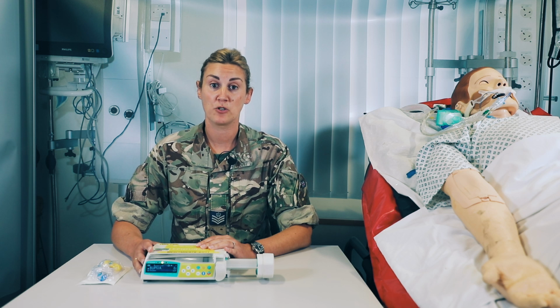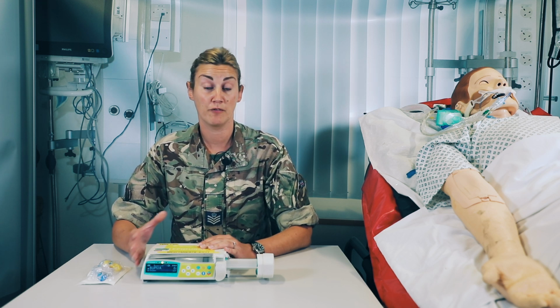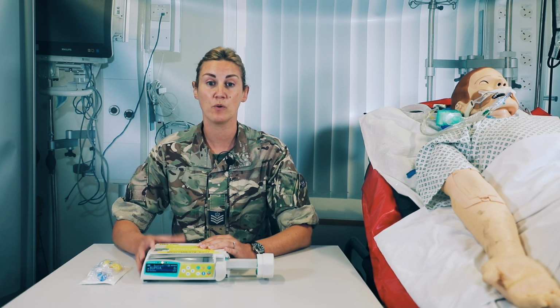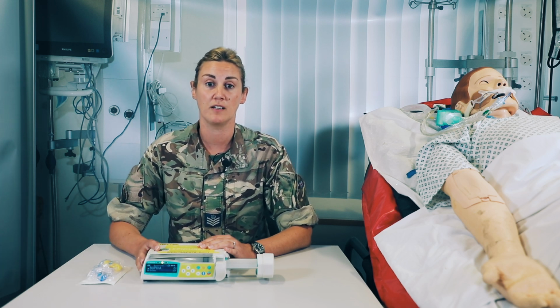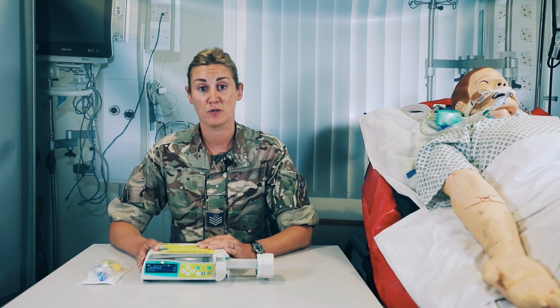The alarms on the epidural are exactly the same as the perfuser, so I'd recommend that you, if you need revision, re-watch that video, but there will also be a picture on the screen of the alarms just to remind yourself. That's the end of the epidural lesson.